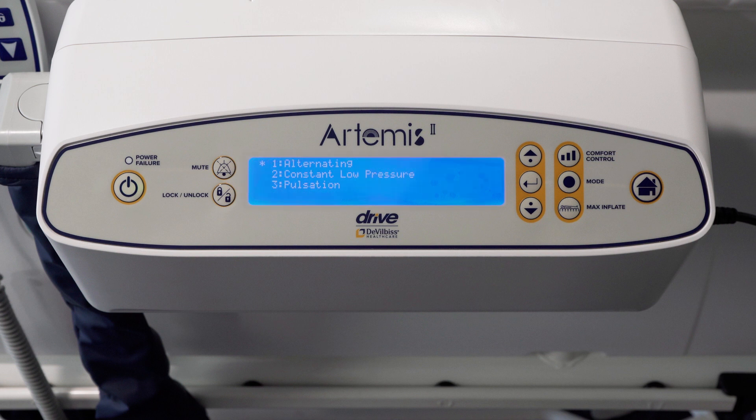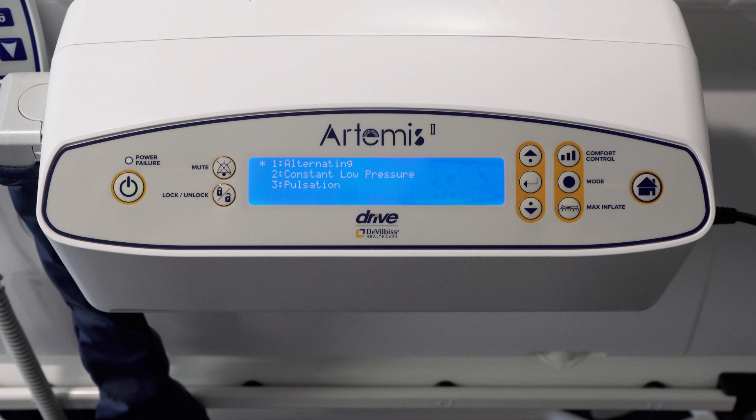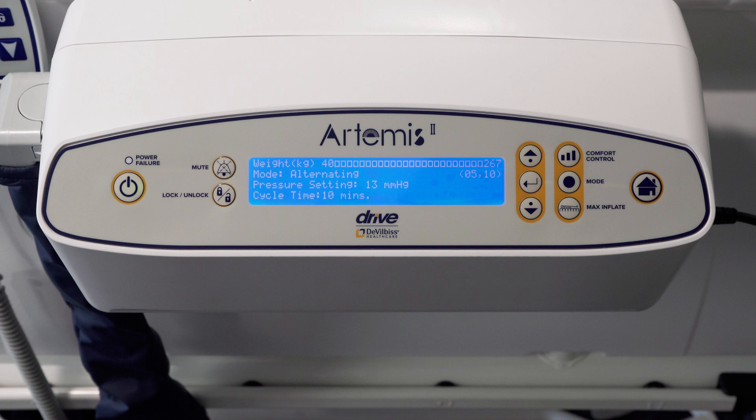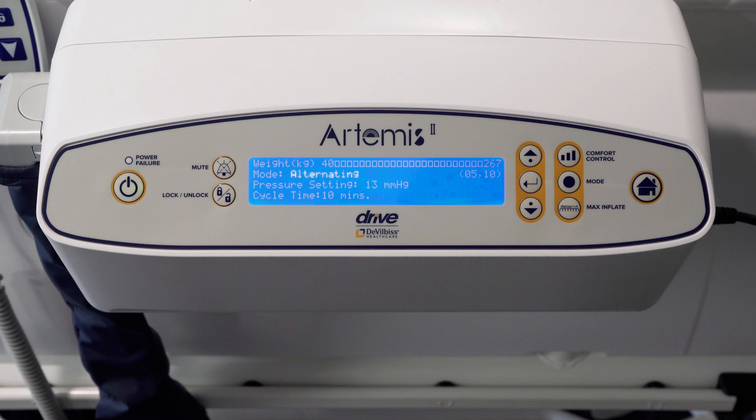The mattress automatically defaults to alternating mode when it is switched on. The three main modes are alternating therapy mode, constant low pressure therapy mode, and pulsation mode. The therapy selected will appear on the home screen on the front of the pump.